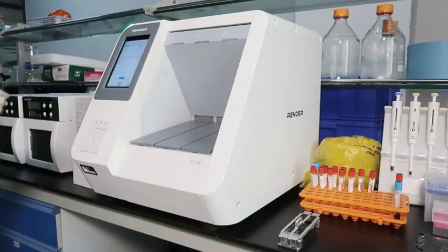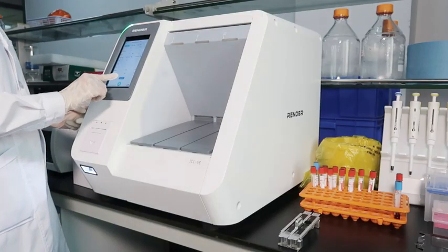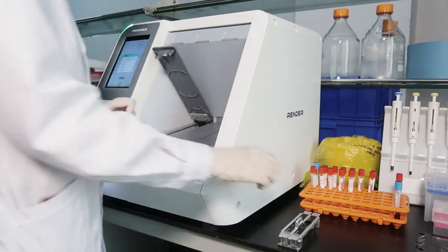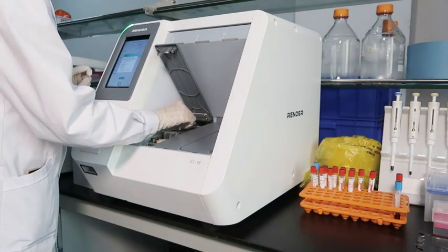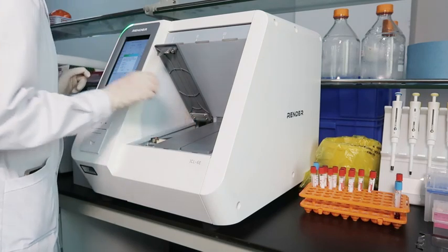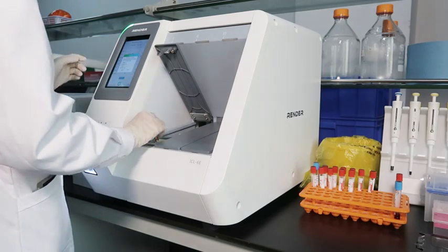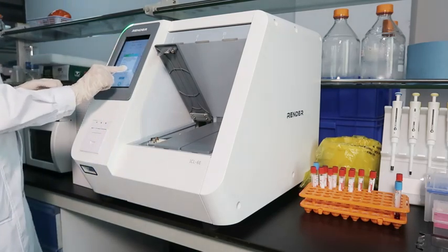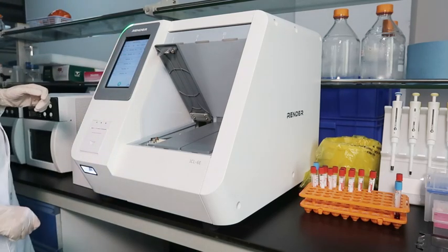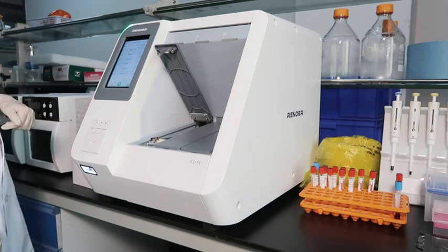Third, open storage. Open the door of the test chamber and place the reagent cartridge and tips. Tap the start test button. Close the door of the chamber.